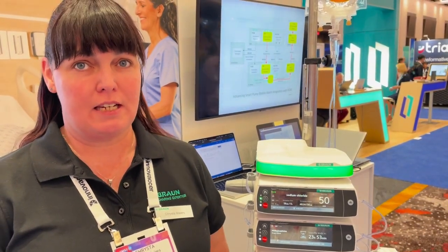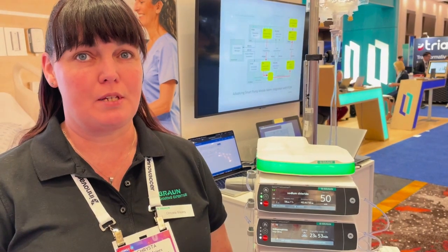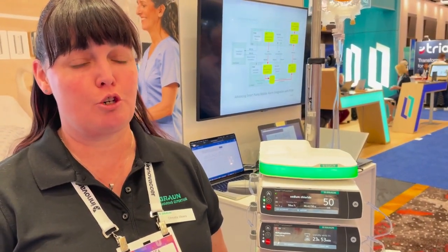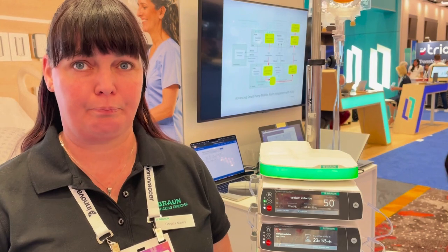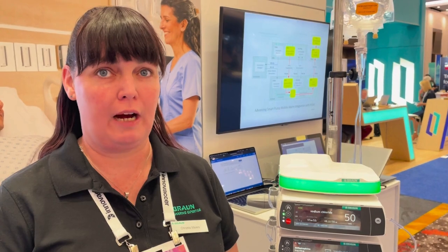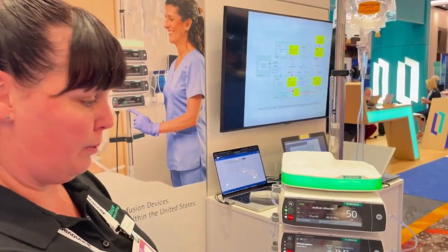Now moving into the second scenario where the gap exists today. Later, the patient becomes unresponsive. Upon additional assessment, his nurse determines he is critically hypotensive. The nurse calls the on-call physician and receives an order to begin an infusion of norepinephrine. To rapidly stabilize the patient, the nurse decides not to wait for the physician to enter the Epic order and instead opts to manually program the pump.